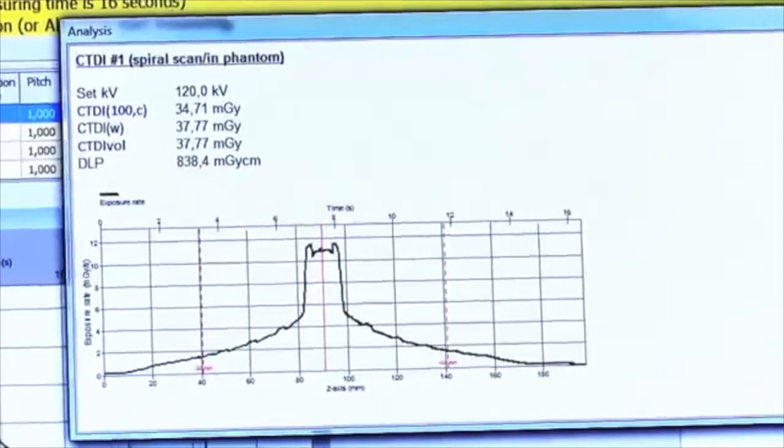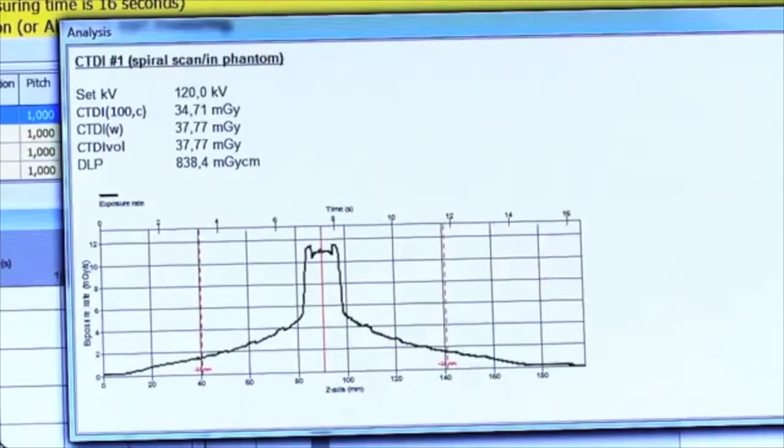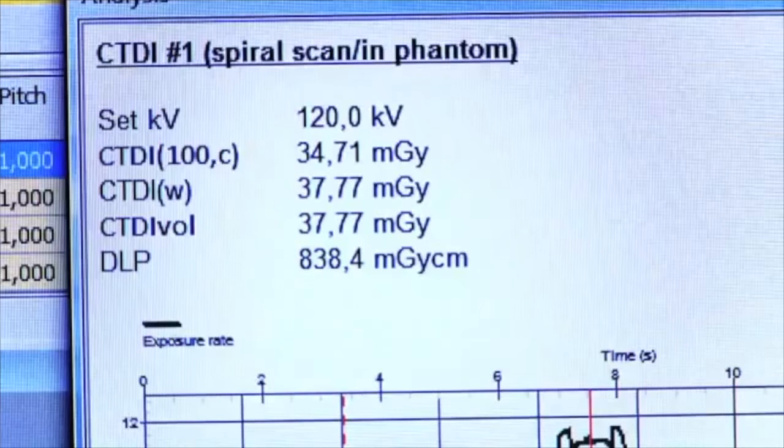With just one scan, Ocean has measured the full dose profile and collected values for the full CT dose index, CT dose index 100, CT dose index, CT dose index volume, and dose length product.